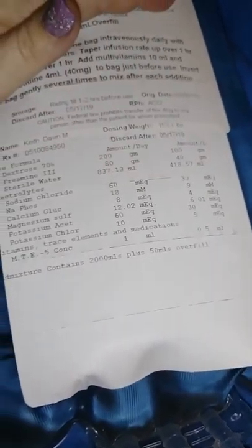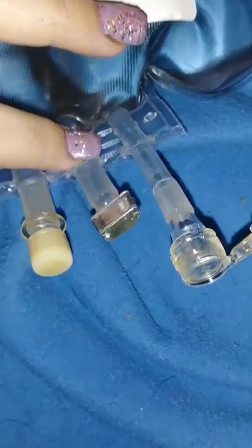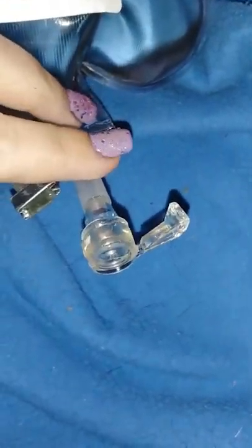It's basically IV fluid, and I have several different things on here that need to get added in. So I have this nozzle, I have a locked nozzle, and then I have a nozzle that we spike. And then I have my whole little thing here with my alcohol prep, my heparin, my sharps, all of that stuff. And then there's my regular flush.